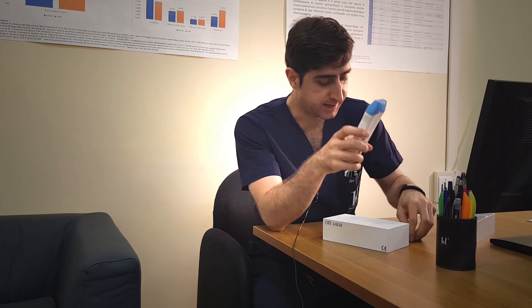How does this work? The use is very simple because it has a single button that is used for powering on and for the freeze, which blocks the image. It connects via a USB cable and it is used with a smartphone screen like this one, or a tablet, which can be both Android and iOS.